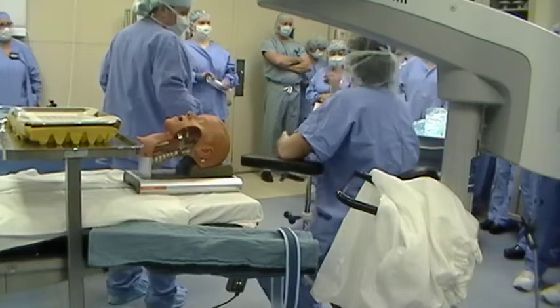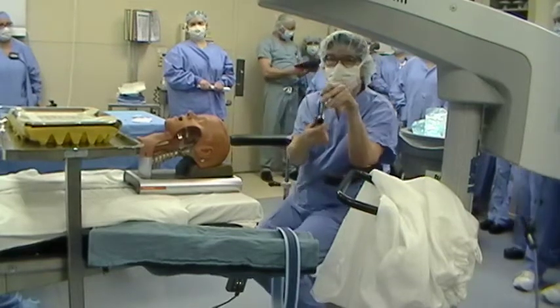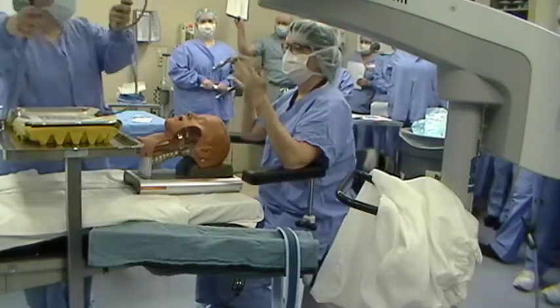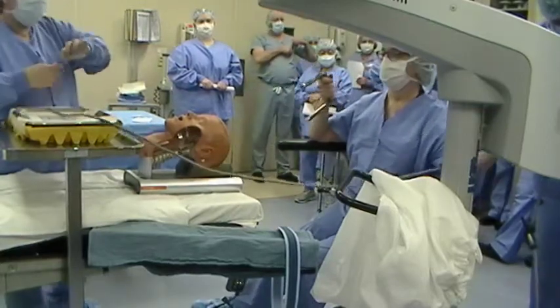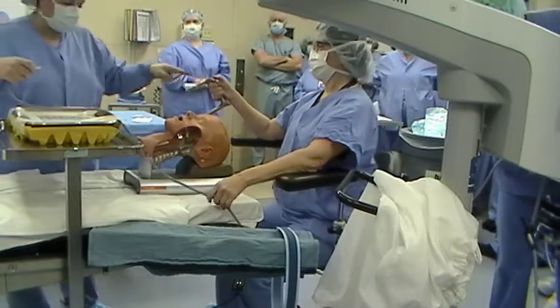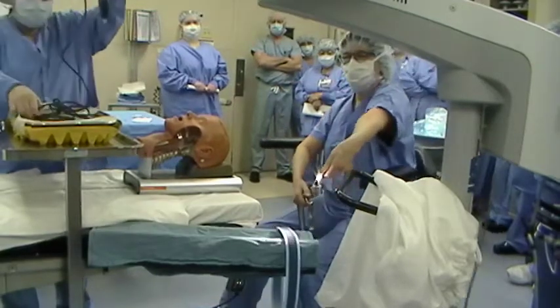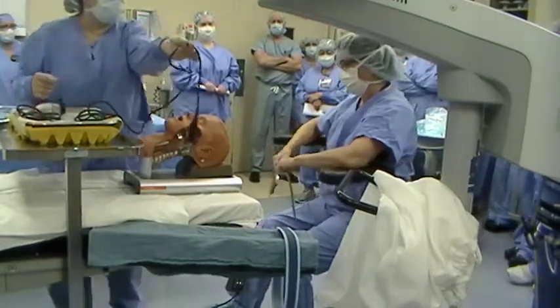The Hollinger's too narrow. I want stereoscopic vision. This is a larger opening so that when I'm using this, both binoculars are seeing the cords down at the bottom. You need two light sources. One of them is for the laryngoscope for putting it in. This is called a pilling — it's got just a little slot, it rotates, turns on, and locks onto the handle. You can see the light coming out; normally it's just coming out in that direction. She's going to have a camera too.